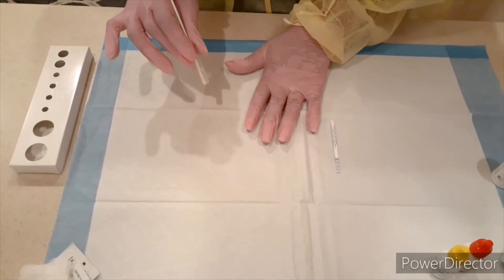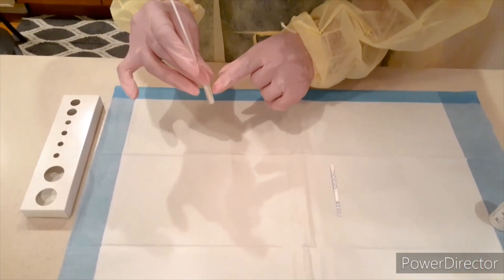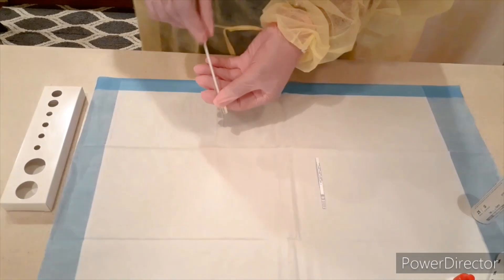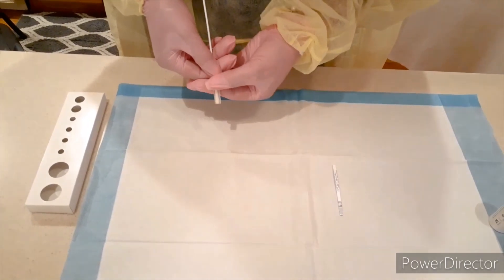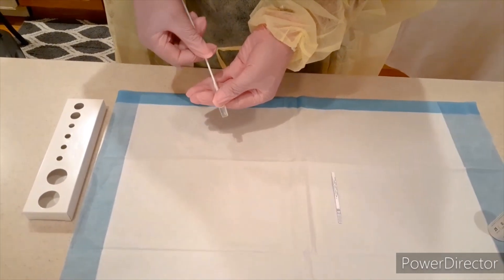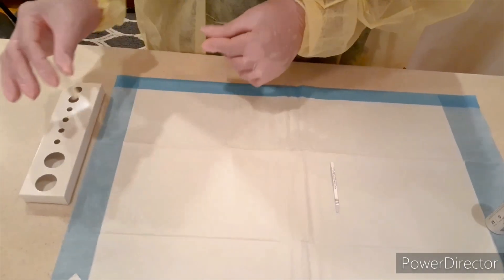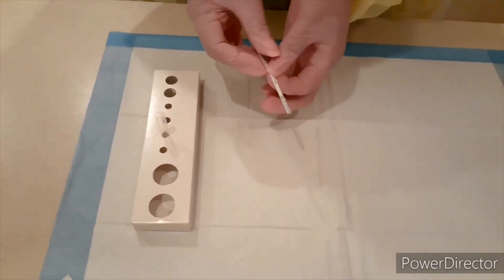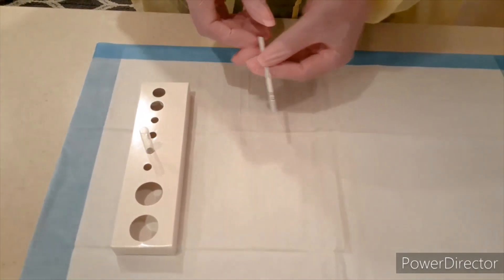Our sample has sat for one minute. What I'm going to do is squeeze off excess from our sample that we used from the swab. I'm going to press down — this tube is very flexible — and kind of milk off anything that's left on this swab, and then I'll discard that. Now here we have our sample with our reagent in it, and as I mentioned before, you have arrows pointing down that shows you the direction that you'll put your test strip into your sample.